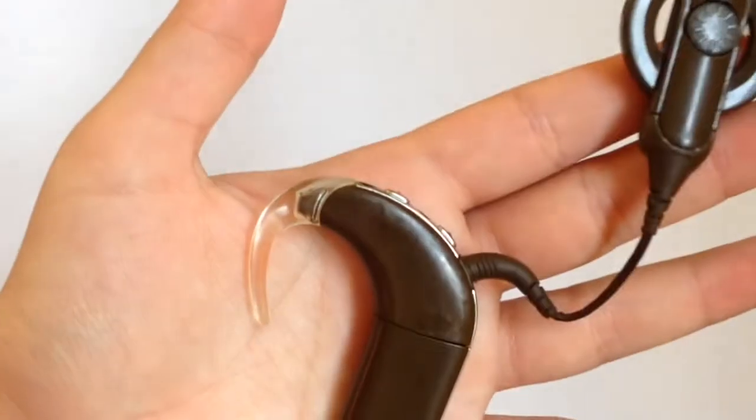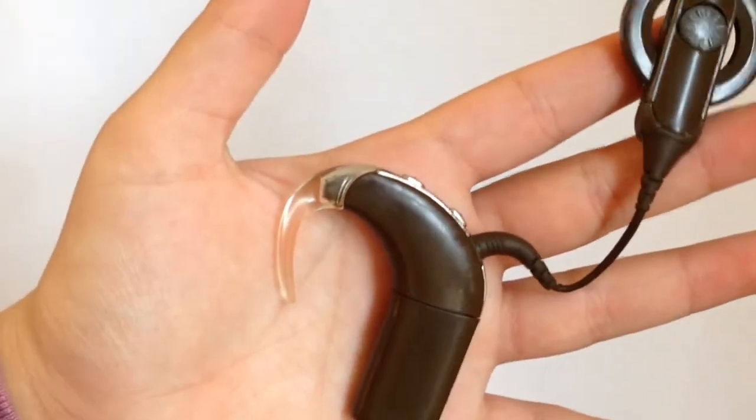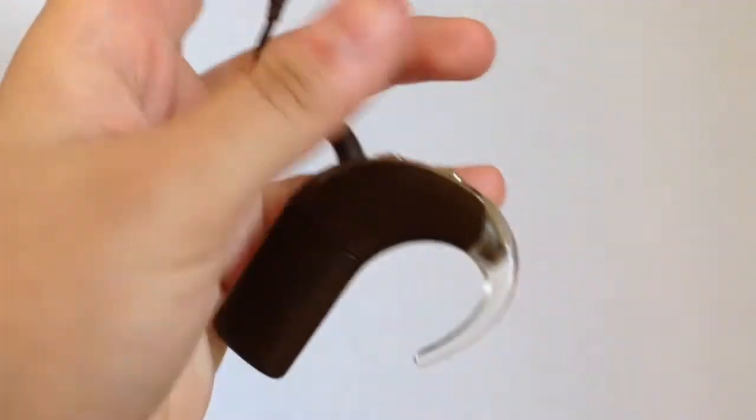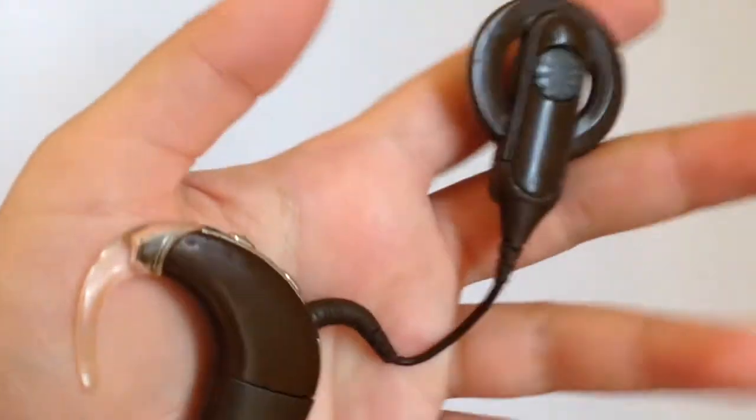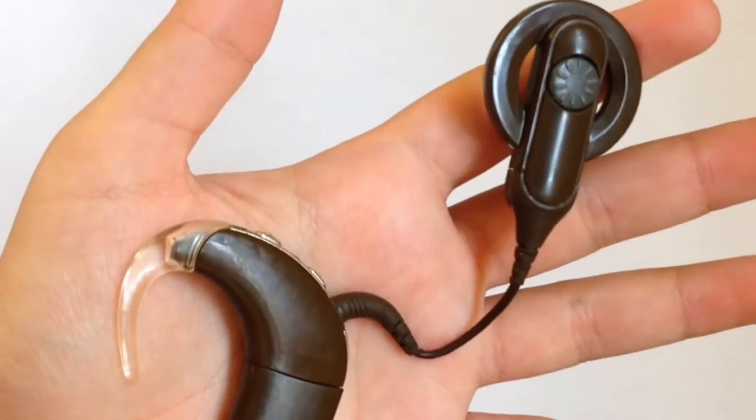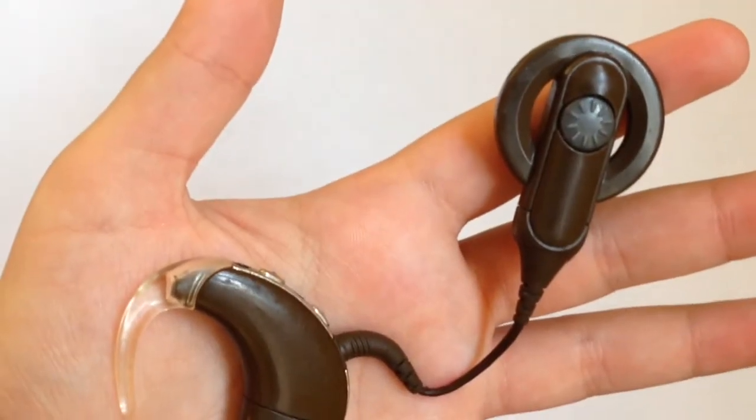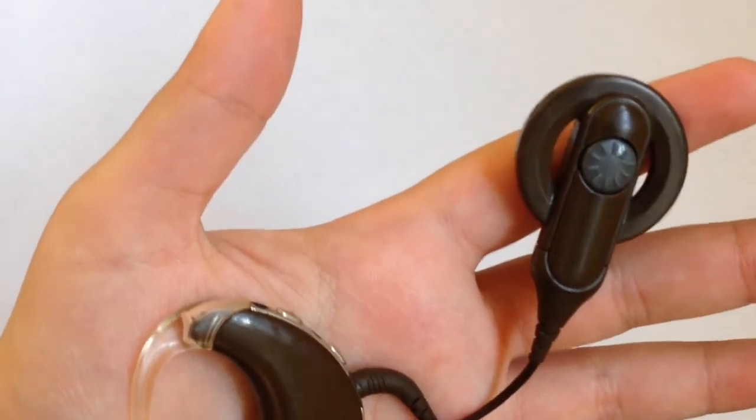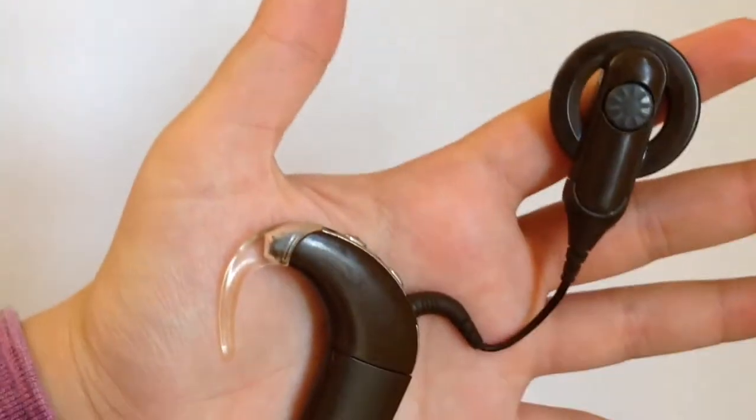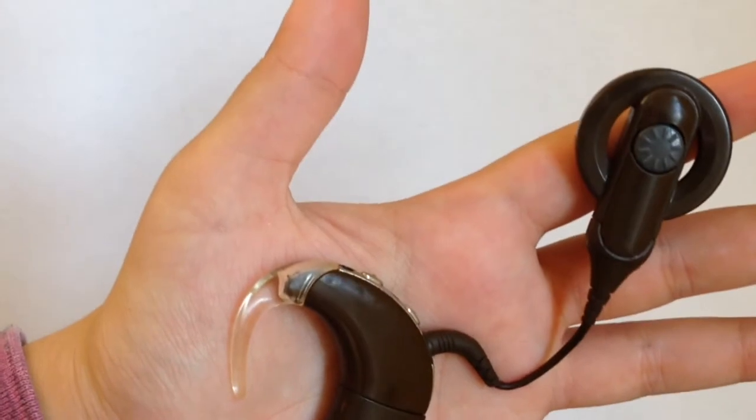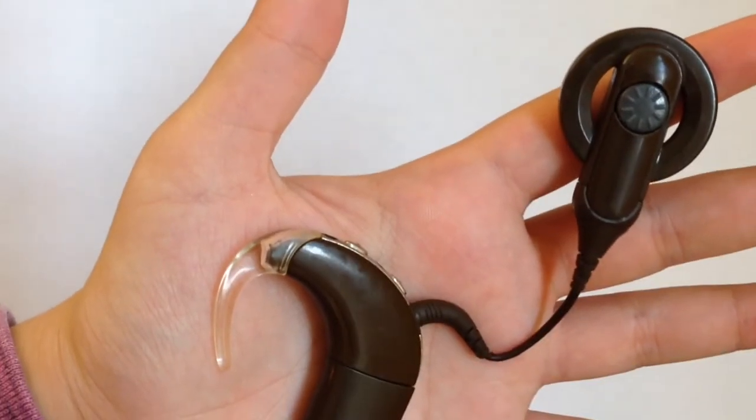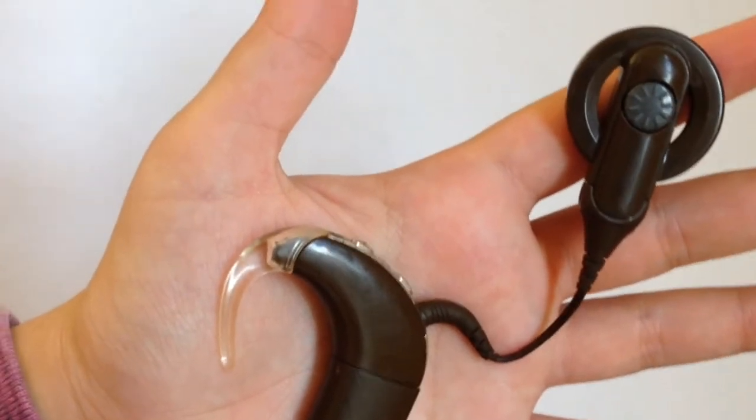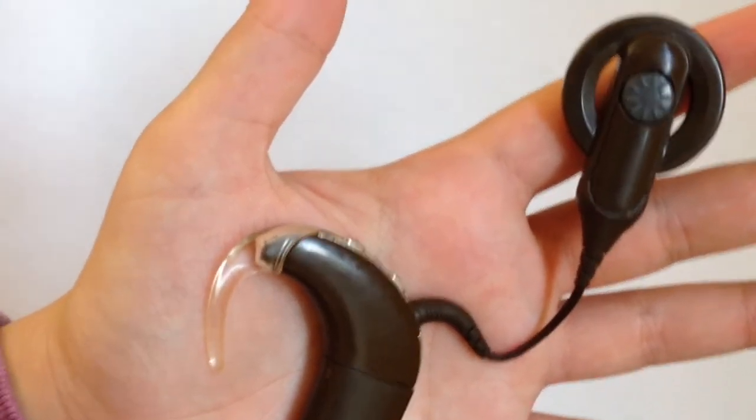I want to tell you, I usually just take it off maybe once. I only take it off if I absolutely need to, if it's not the right size or if it's broken, then I'll take it off to replace it. But this hook has probably been on for the past, maybe a year and a half, and I haven't had any need to take it off.